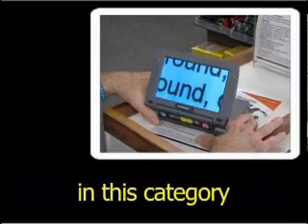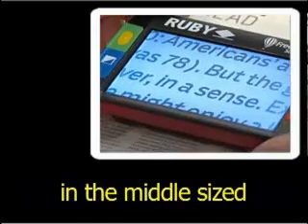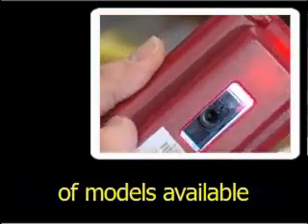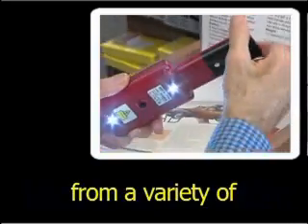The first models in this category to be produced can be placed in the middle-sized subcategory. This subcategory has the largest number of models available from a variety of manufacturers.